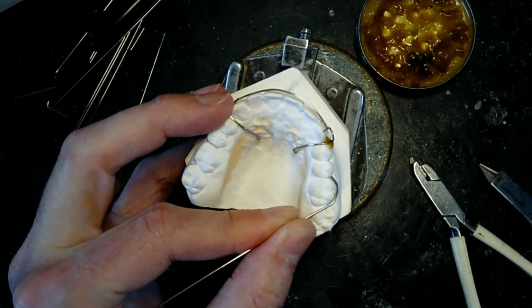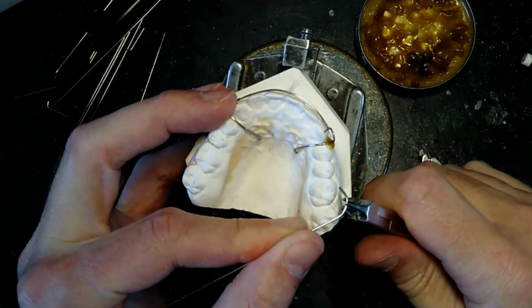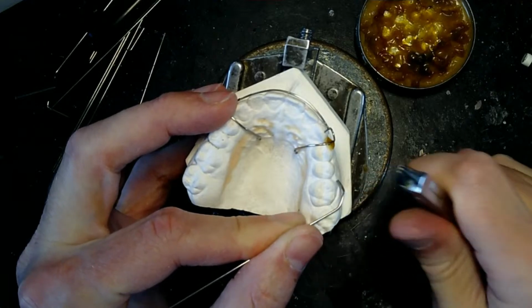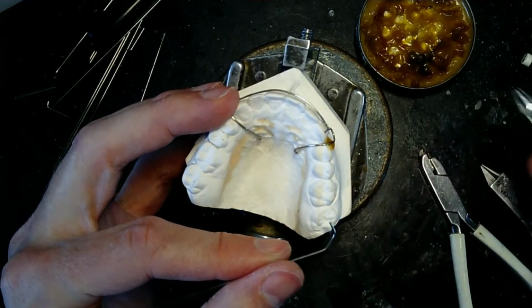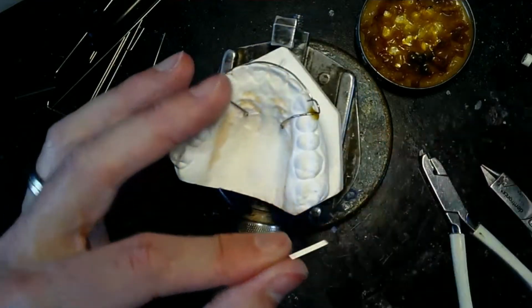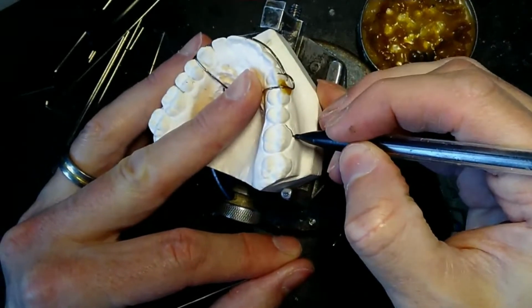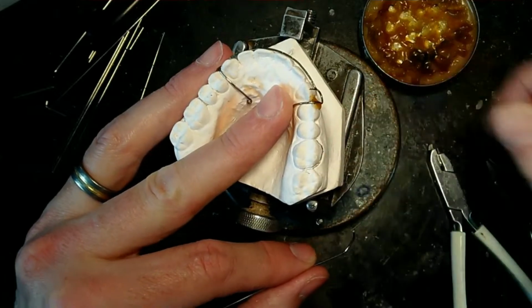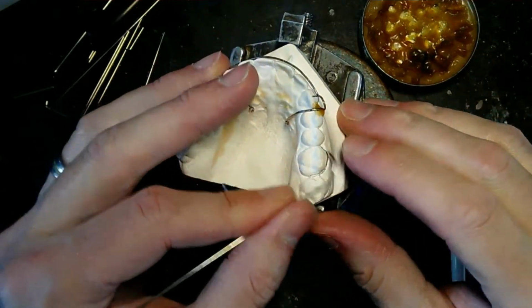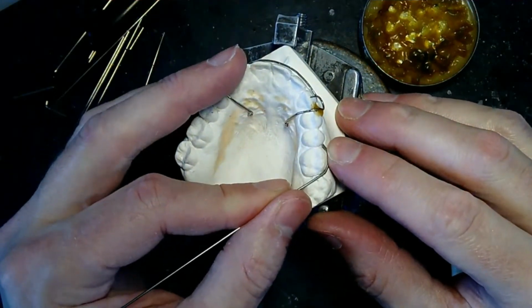I'm getting a little bit of space, so I'm going to flatten right here because I think I made it. See how flat this is right here? If I can put this in the right. Let me mark this. It might help y'all. So it's a little flat right there.